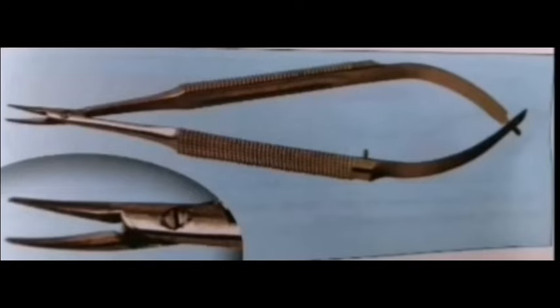Among the needle holders, the first one is the spring action needle holder, also known as Barraquer type. The jaws of the needle holder are firmly serrated to hold fine needles firmly. It is used for passing sutures in conjunctiva, cornea, sclera, and extraocular muscles.